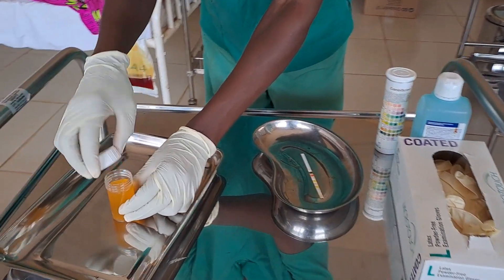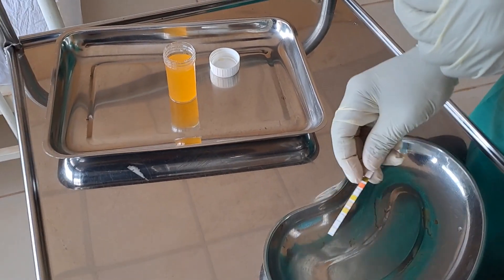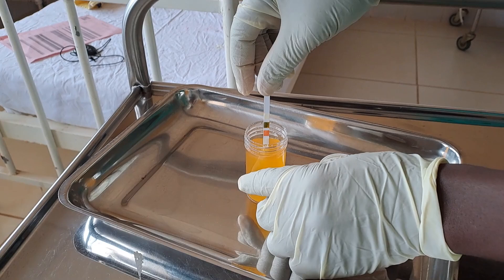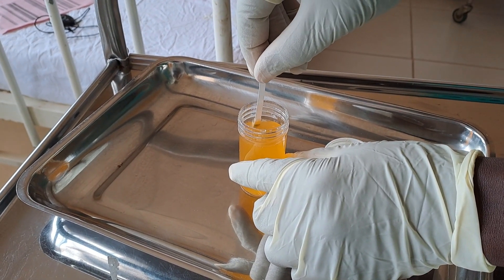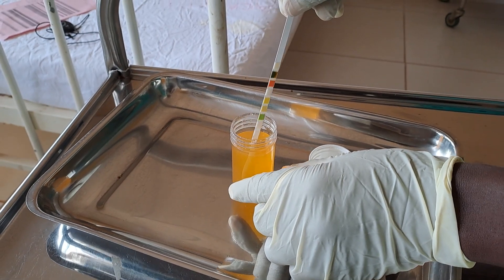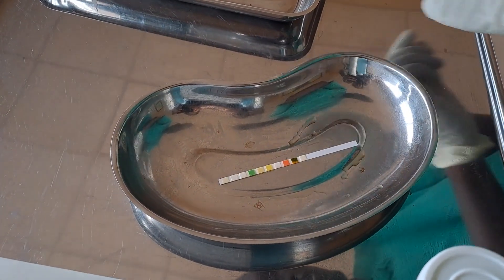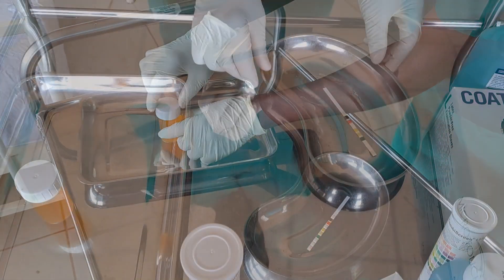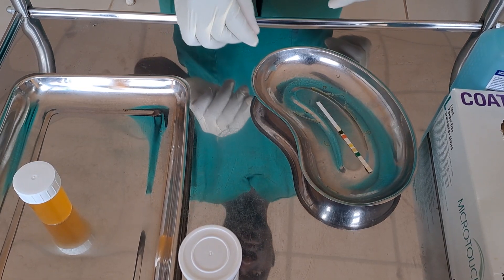Method 2. Open the lid of the urine sample. Completely immerse the reagent area of the dipstick into the urine sample for 1 to 2 seconds, or according to the manufacturer's instructions. Withdraw the test strip and gently tap the edges of the strip against the urine container to remove excess urine. Lay the strip horizontally on a flat surface to ensure accuracy. Do not touch the testing area of the strip to avoid cross-contamination.